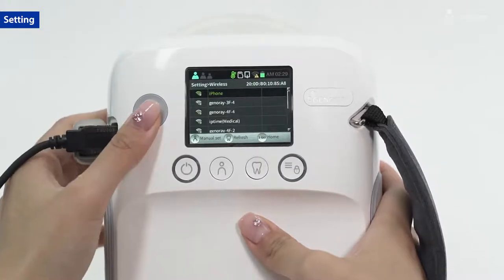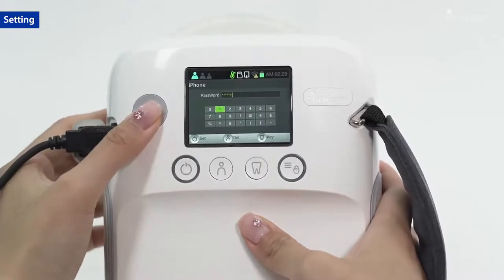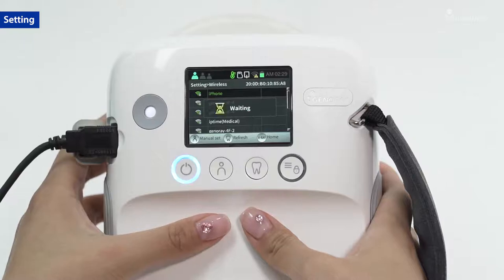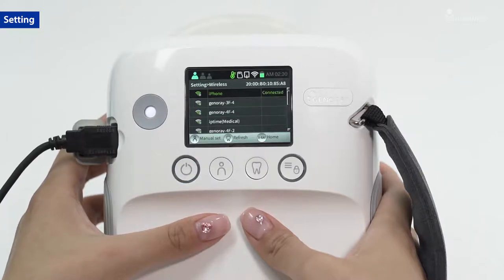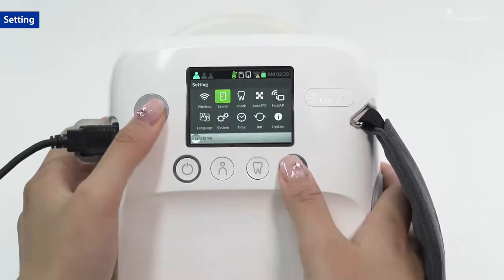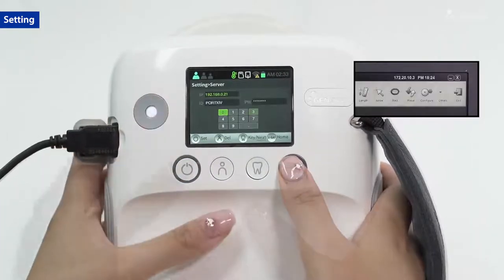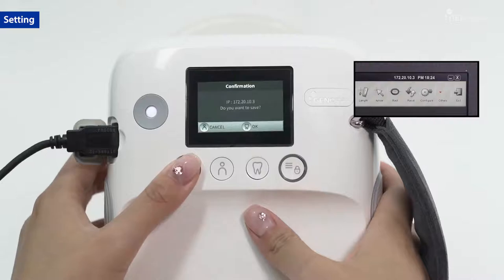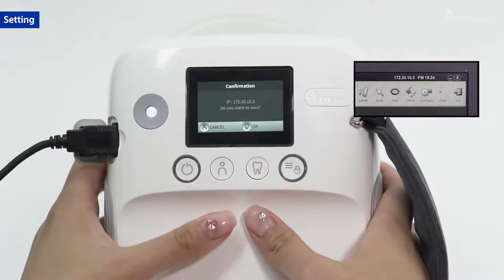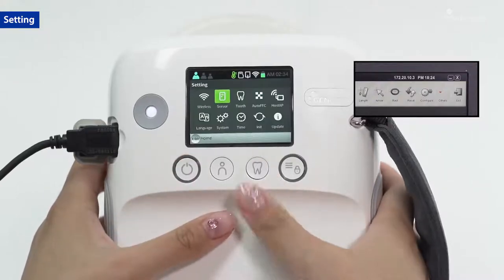Set up a Wi-Fi connection with the server. Set the preferred server to connect. You can check the IP address at the top right of PortView software.